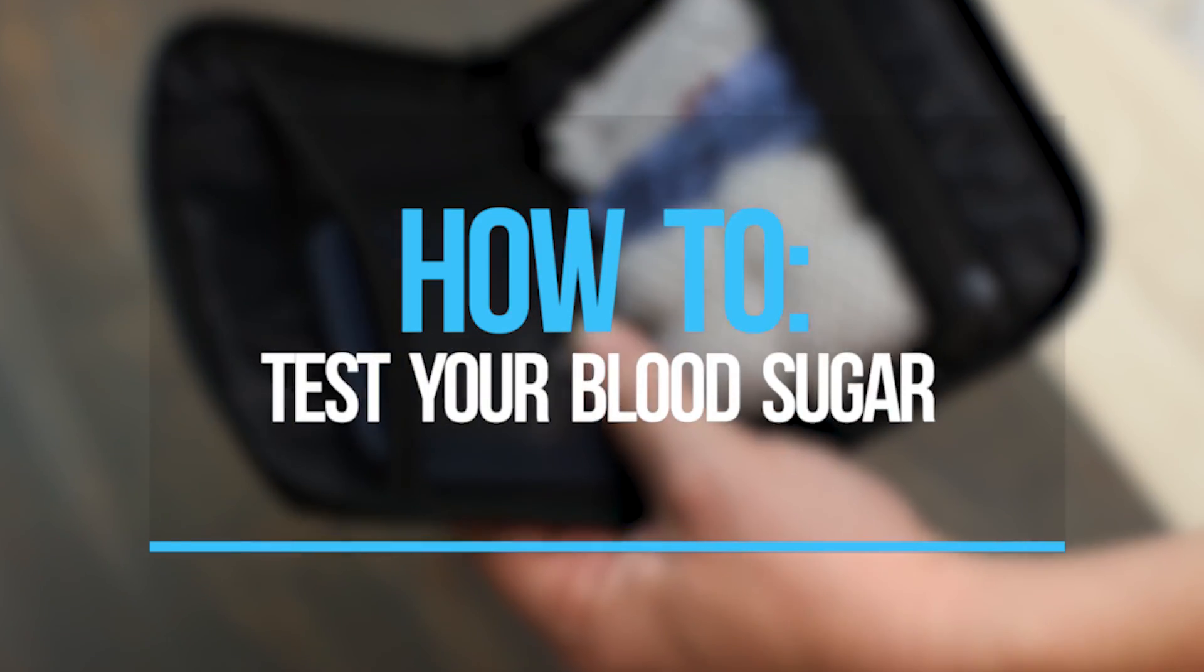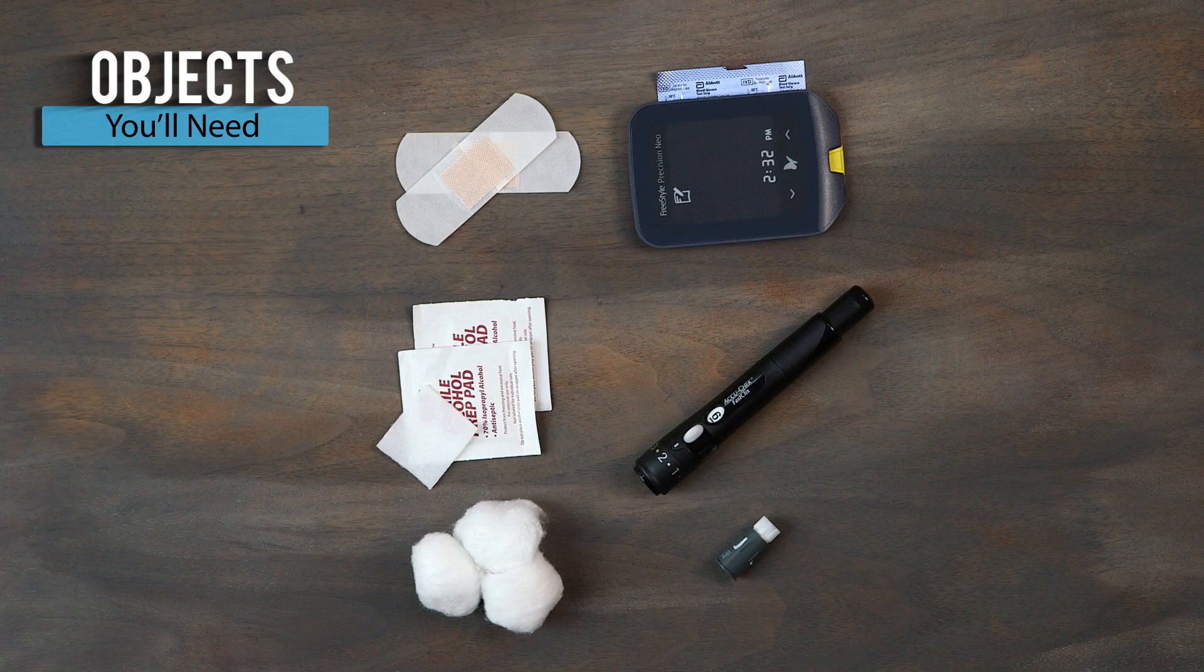Testing your blood sugar is easy, even if you haven't done it before. You'll need the following things.